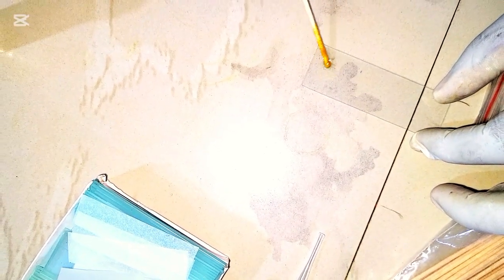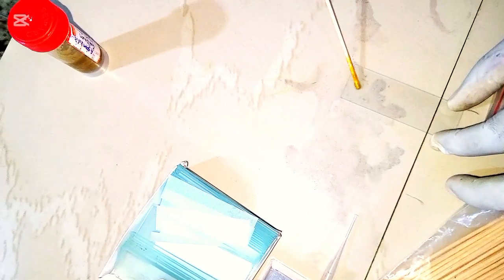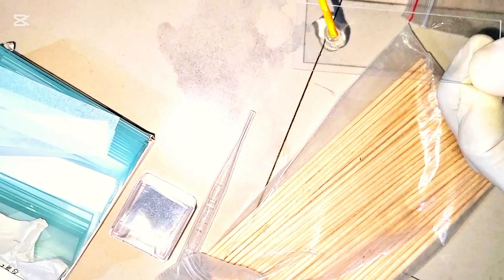Now we emulsify. Don't emulsify too much of the stool. Don't make your preparation too thick. Just make it light. So when you know you've done a good preparation, this is how it looks. You don't have any solid particle inside. You see this? So you don't have to pack the stool sample.